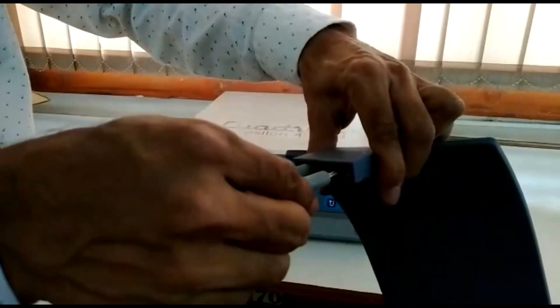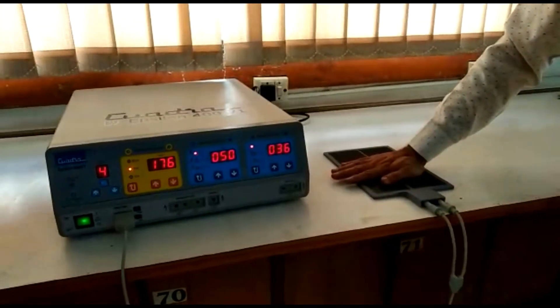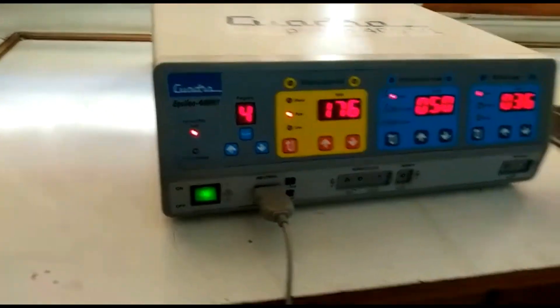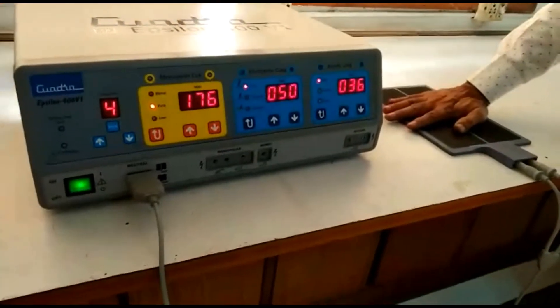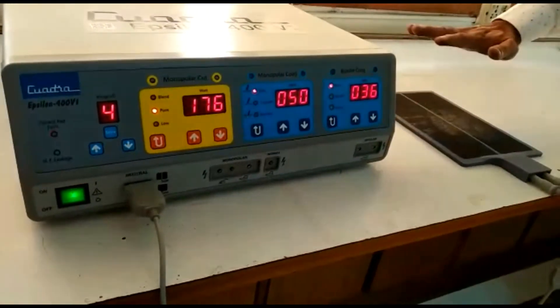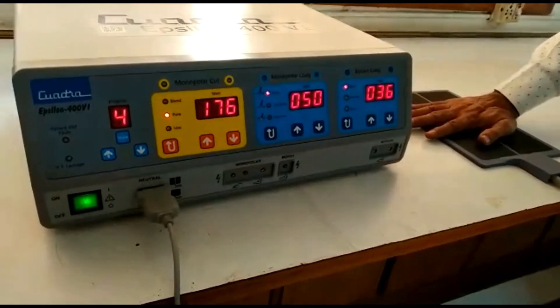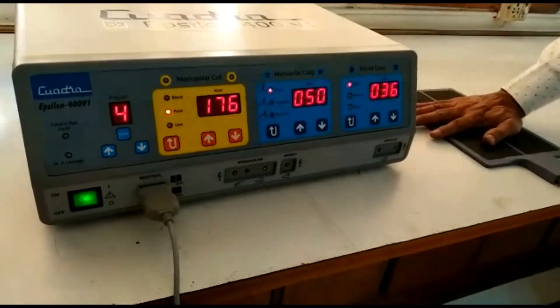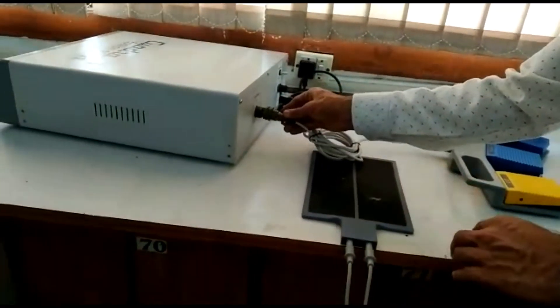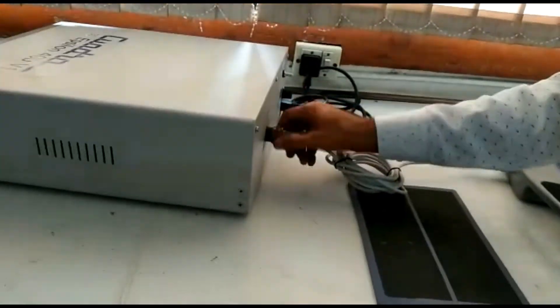This is a reusable patient plate. You would have seen the blinking of the patient plate fault indicator on the machine earlier — now that blinking is gone. If there is not enough contact between the patient and the patient plate, the blinking will appear. If the contact is sufficient, the blinking will go off. This is a safety feature to protect the patient.